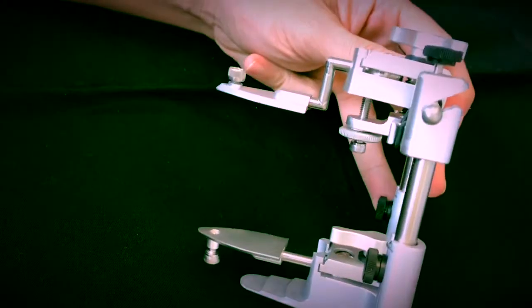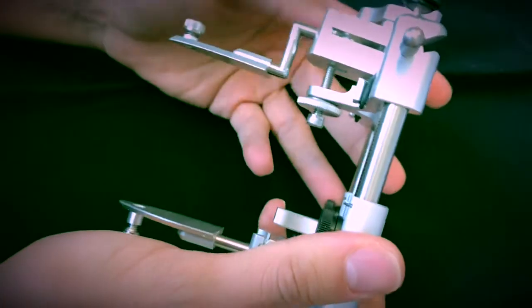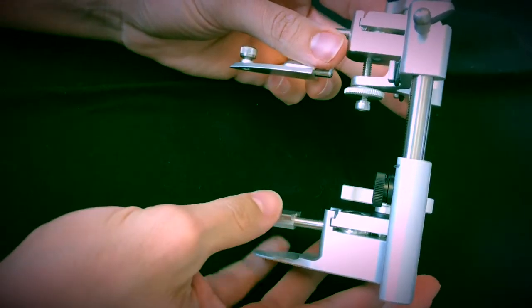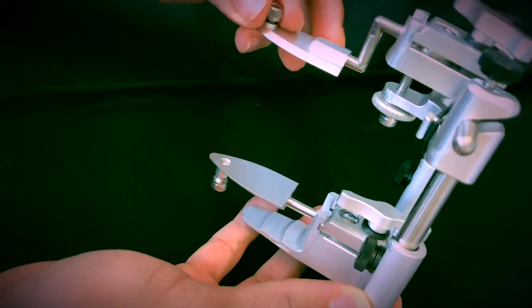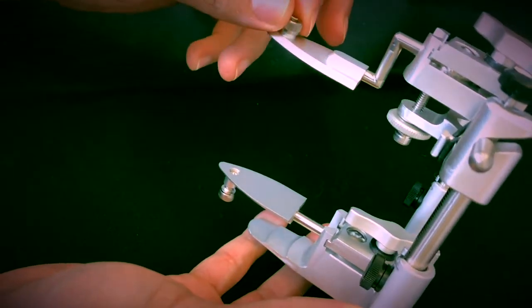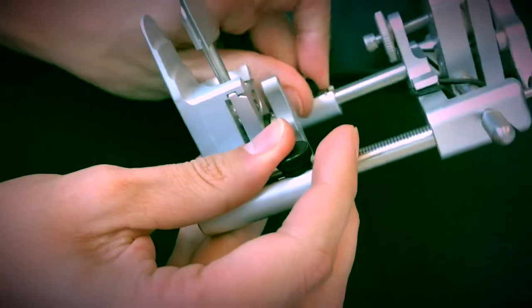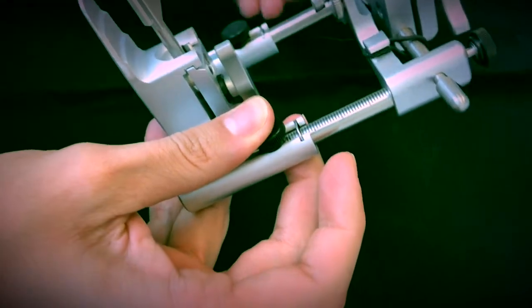In some previous videos I already explained how to use this little articulator for printed models, and you can use it for regular models as well. It's a plasterless articulator. So basically what you do is you mount the models without the need of using plaster, which is really great, and especially for CAD/CAM applications where the bases of the printed models are not that tall.